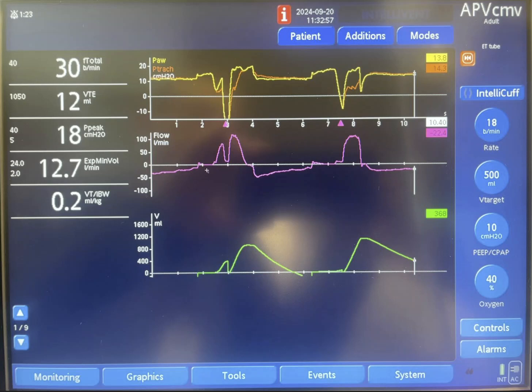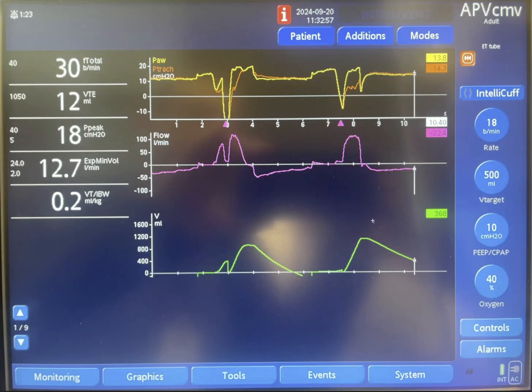I'm not sure exactly why the ventilator-delivered breaths produce no volume, but the pressure was likely not enough to overcome the resistance or elastance of the system. It is also unclear whether the patient was actually trying to exhale at the same time. The huge patient effort then resulted in a large tidal volume. Please put your comments in the comment section on YouTube or on the website — I'd be happy to discuss this further.